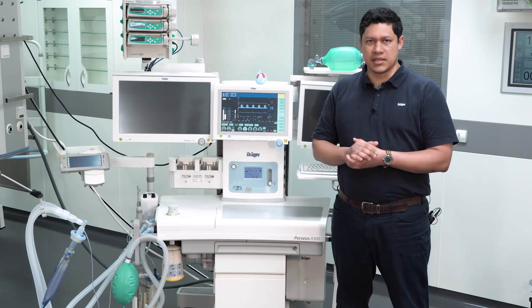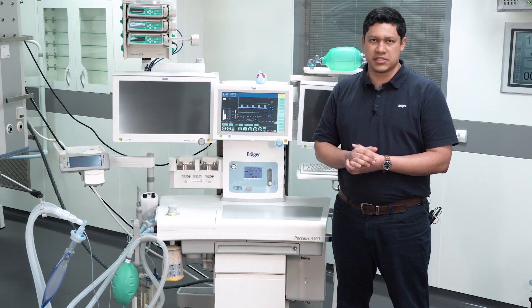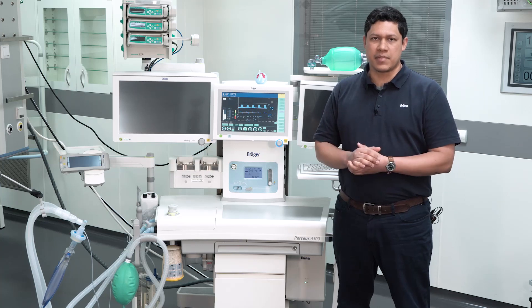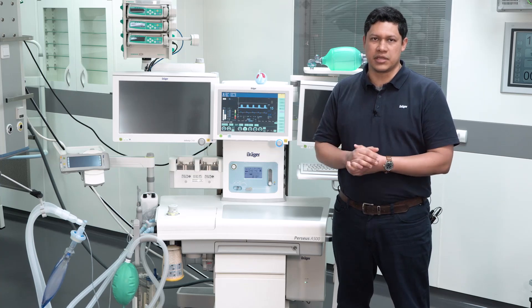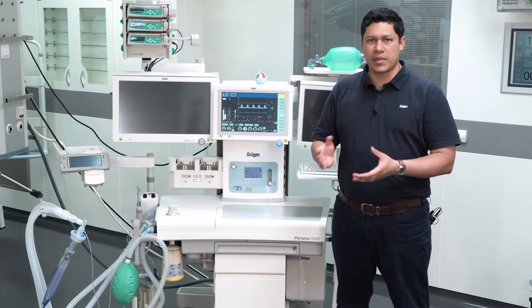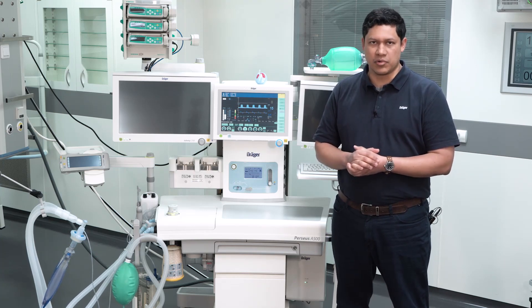Our recommendation is that the user should always be in the vicinity of the anesthesia device. Keep in mind that the design of the alarm management has been done for the operating theater. We recommend also to set the alarm volume to the maximum level.